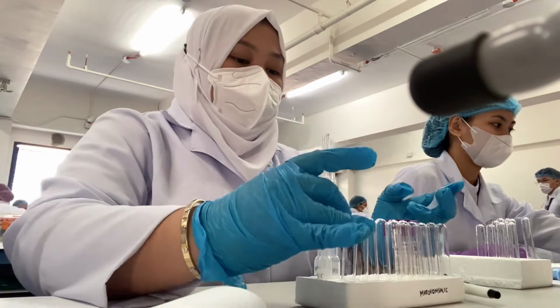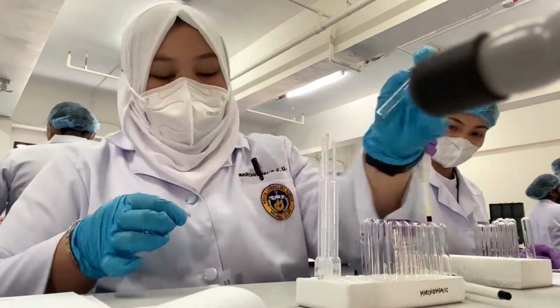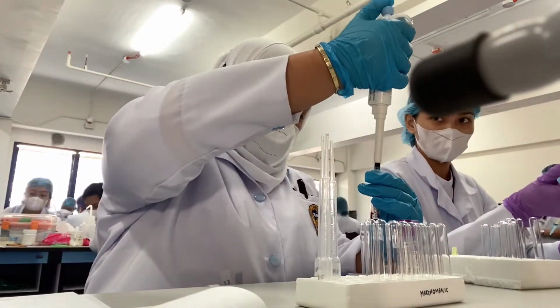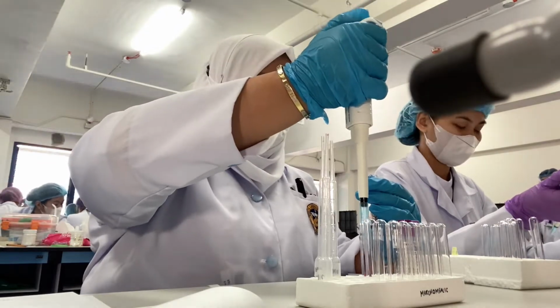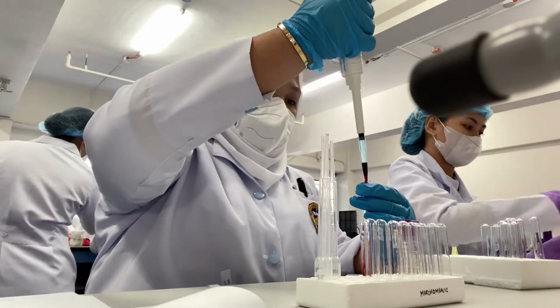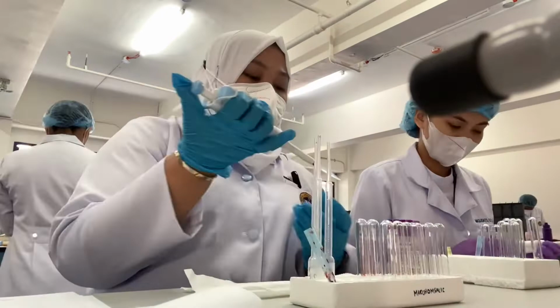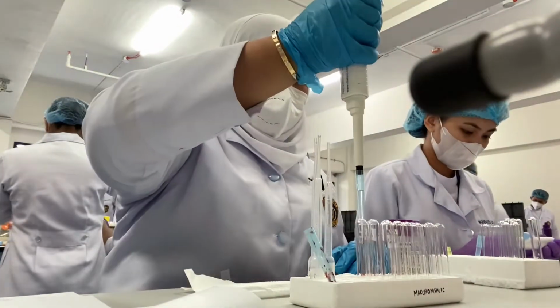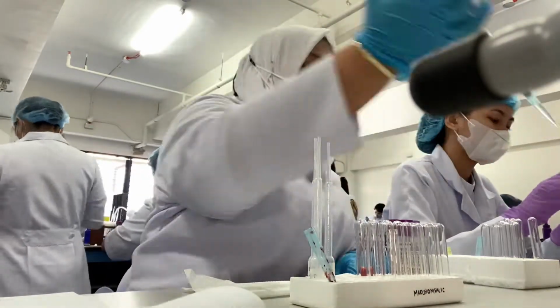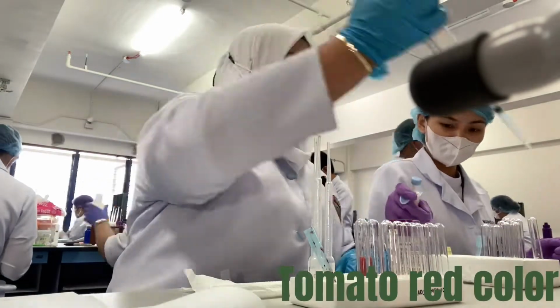5% red cell suspension is a common reagent in many serological procedures. To do this, step 1 is to label 2 test tubes with 4 ml RCS. Step 2, add 200 UL of washed red cells to the labeled tubes. Step 3, add 3,800 UL of normal saline solution to the labeled tubes. Always remember, a proper red cell suspension has a tomato red color.